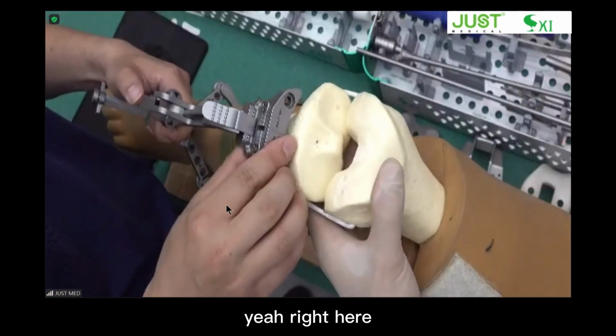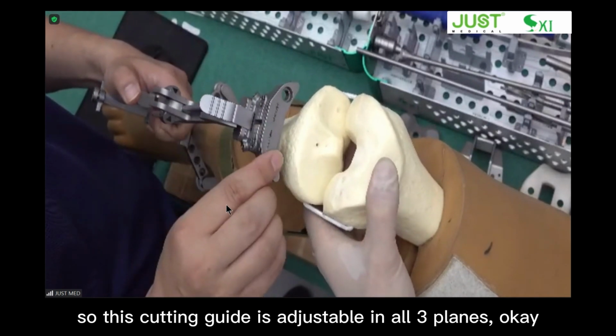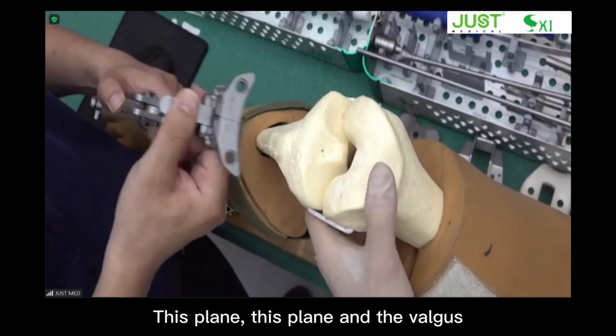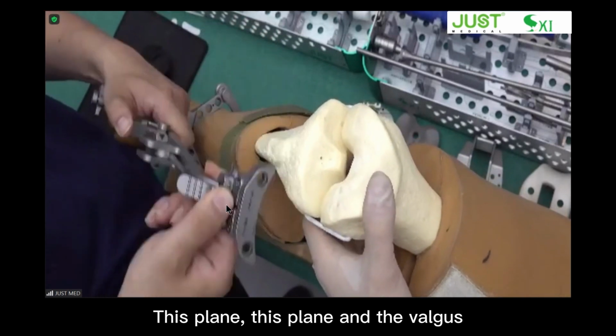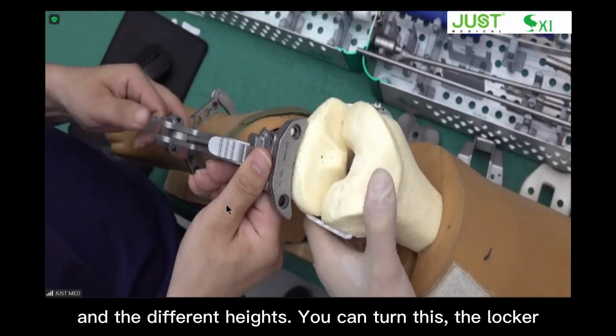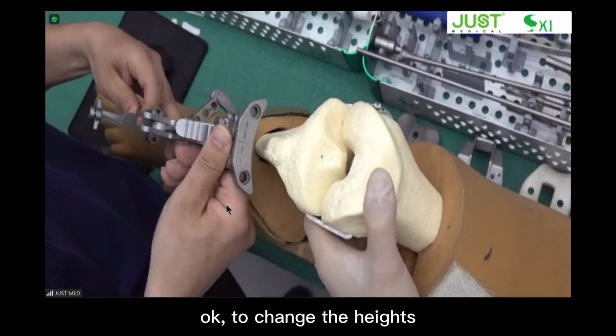Yeah, right here. So this cutting guide is adjustable in all three planes. Okay, this plane, and the valgus, and a different height. You can turn the locker to change the height.